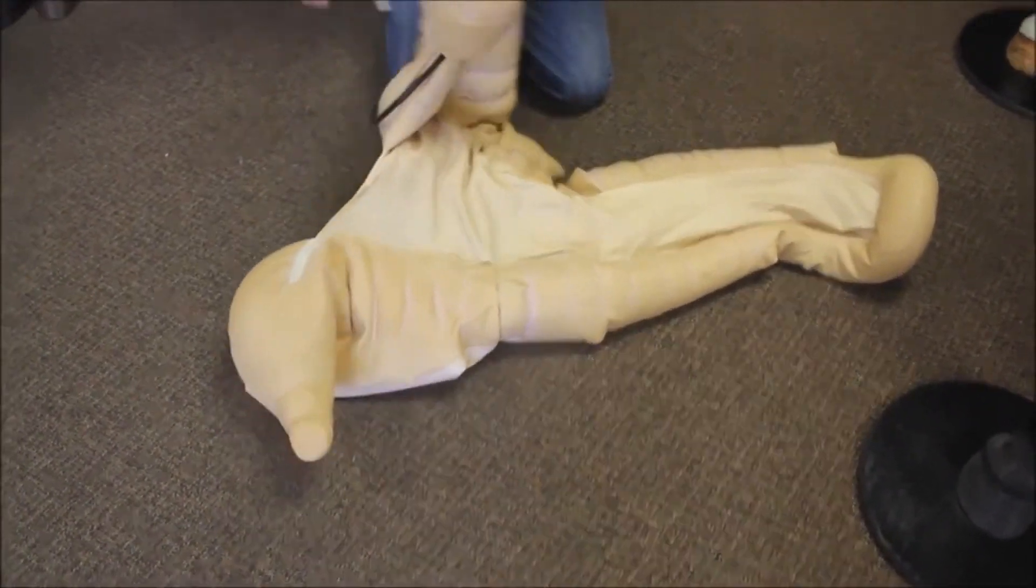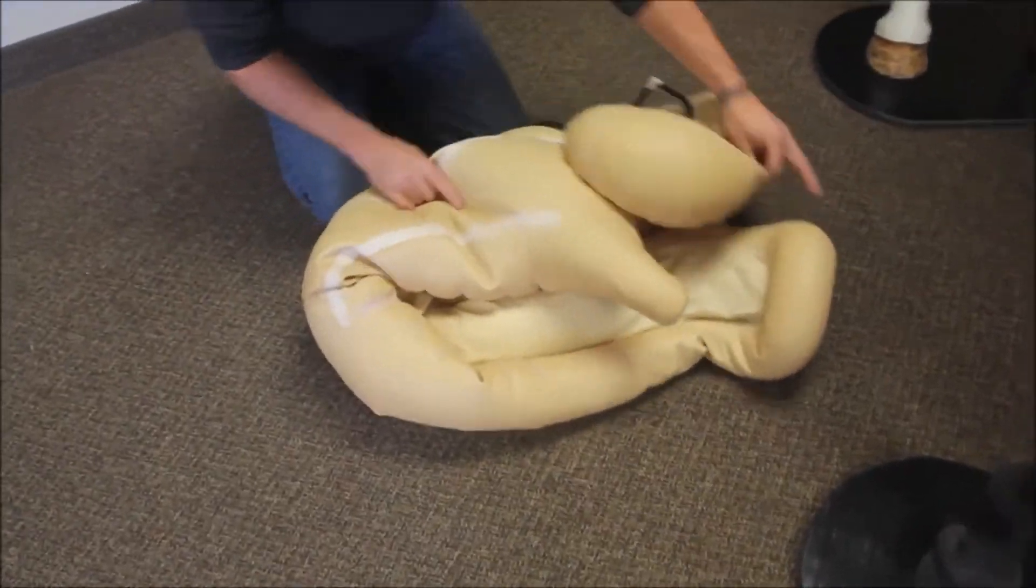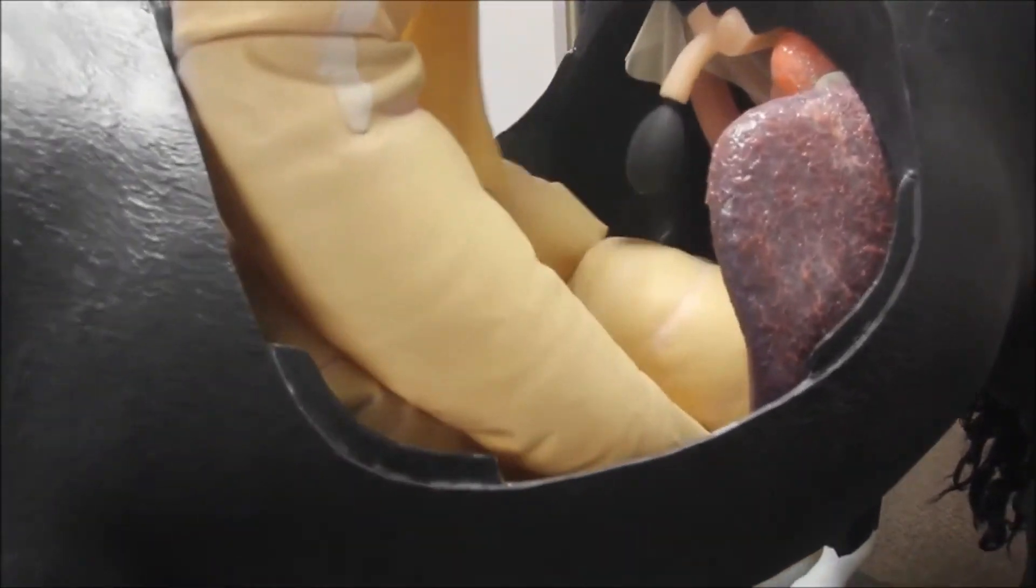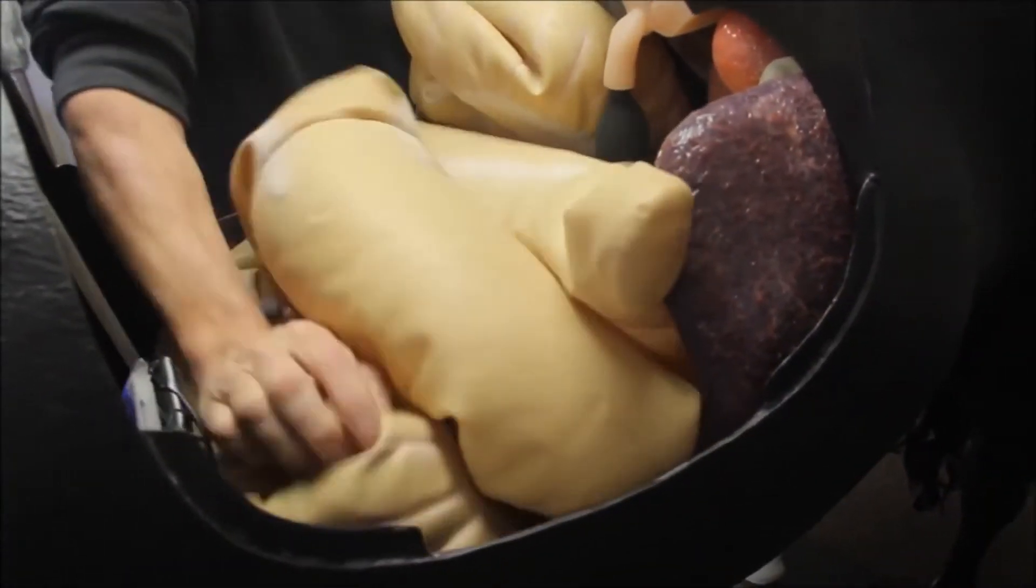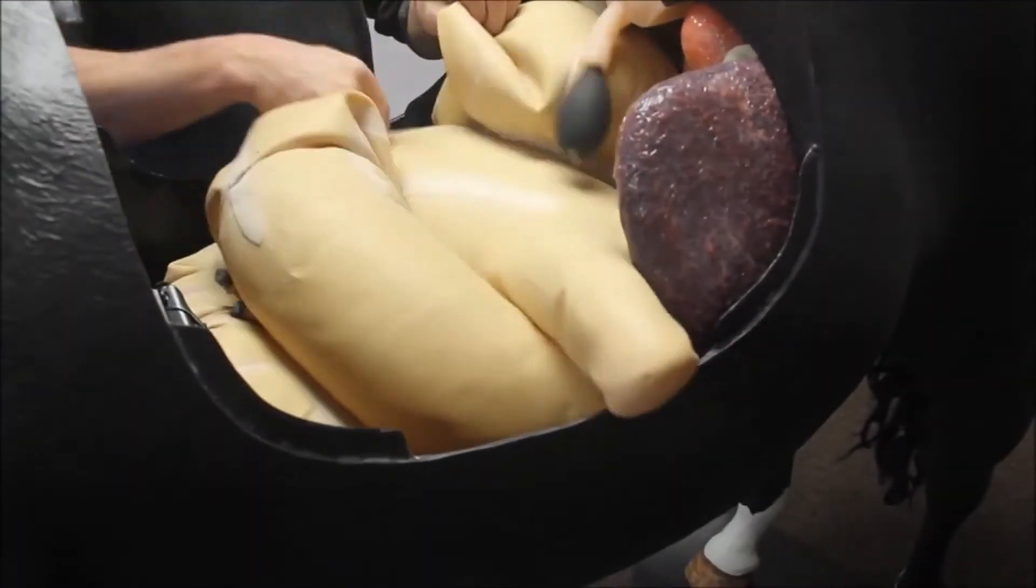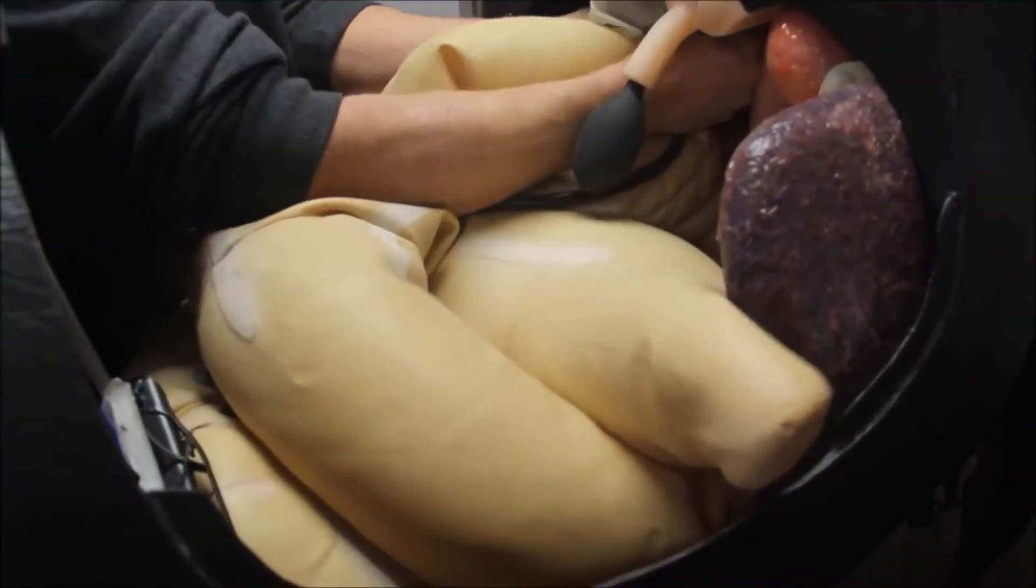To install it, fold the unit as shown and place it into the horse. The black tube connects to a D-ring located in the dorsal wall within the horse.